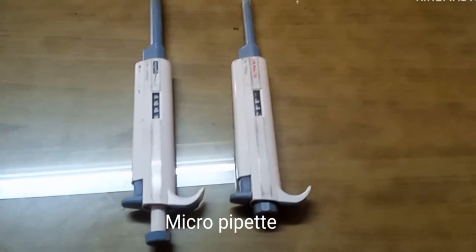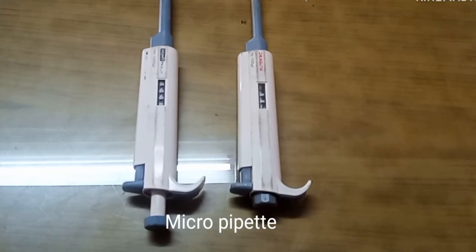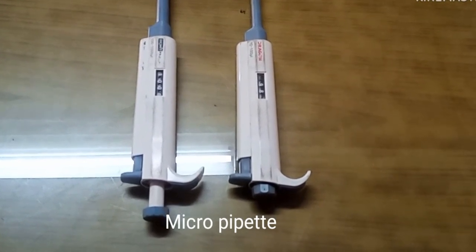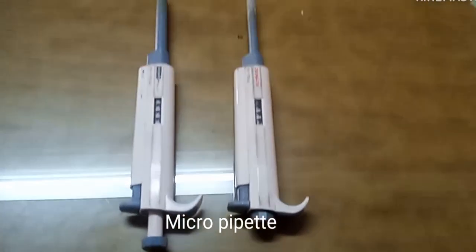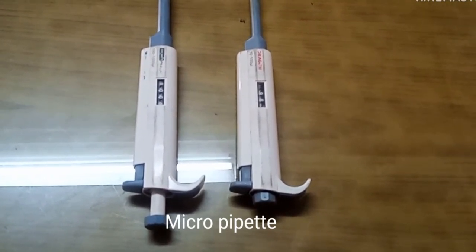Now you are watching a micropipette, which is used in different laboratories like biochemistry, serology, immunology, virology, microbiology, etc. There are disposable plastic tips placed at the end of the micropipette shaft.